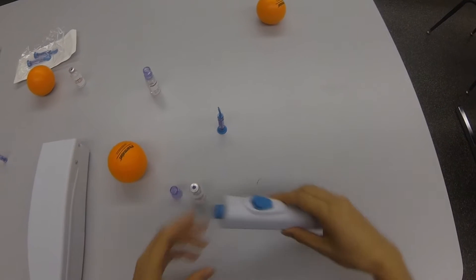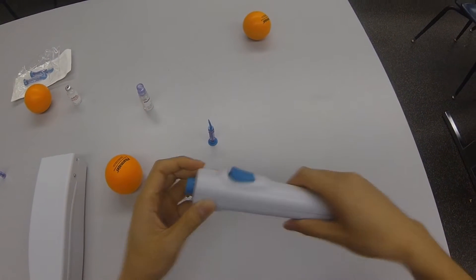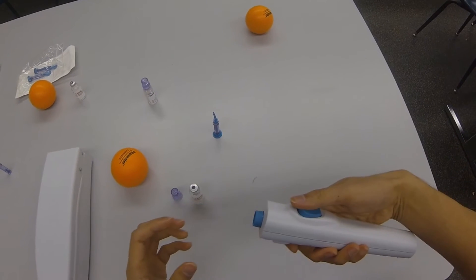Needless injection. First, let's check out our device. The button on top is for loading and injecting. The bottom button is for getting rid of the used dose.